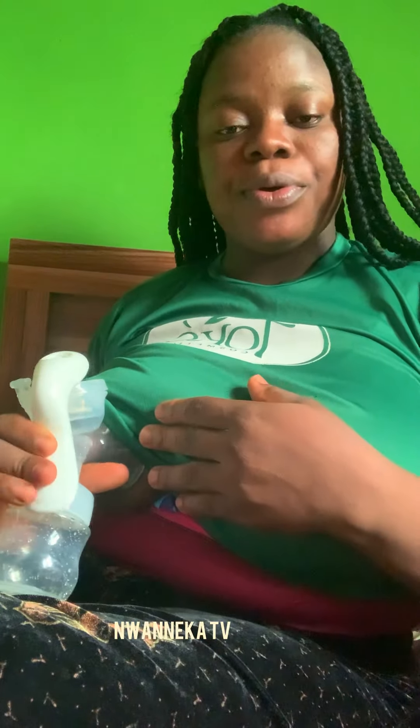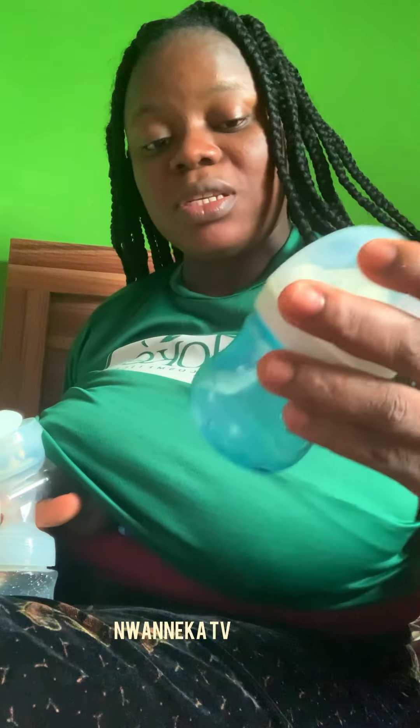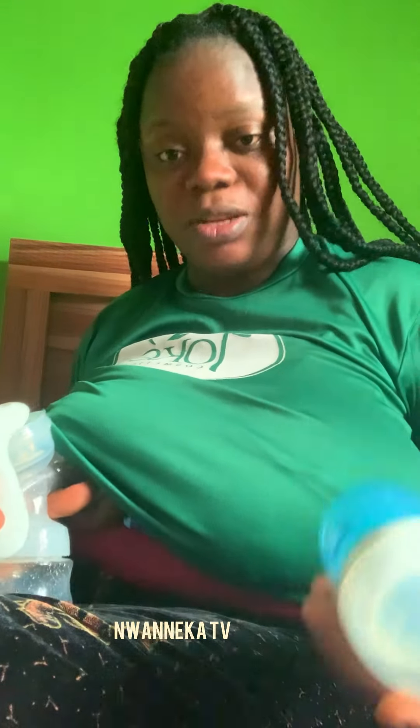So that is how I pump. Let's set a timer for it. Mind you, I don't use this breast pump steadily because my baby sucks directly, so don't expect me to produce as much breast milk as last time. That was why I took this little one — if I'm able to produce 120ml I've tried, because my baby has been sucking normally and directly. It's only when he's sleeping that I'll try to use the pump, because when he feeds from this feed it fills his stomach more than sucking directly.